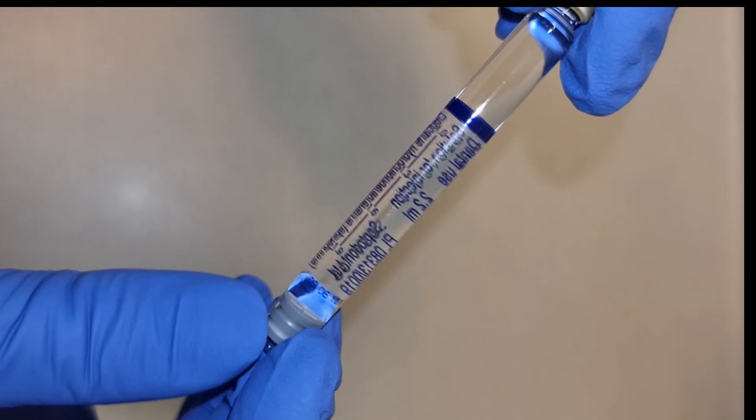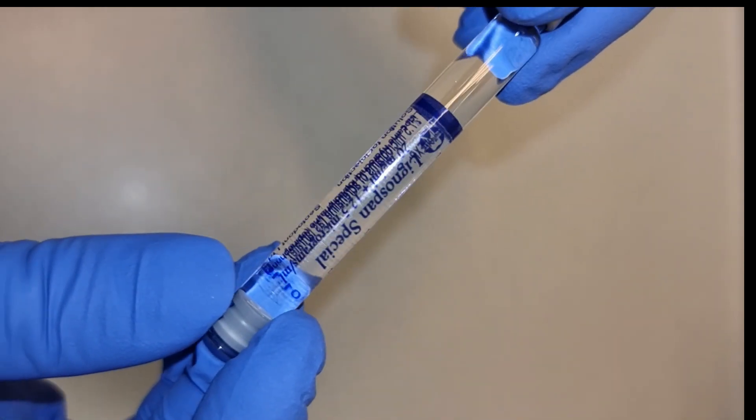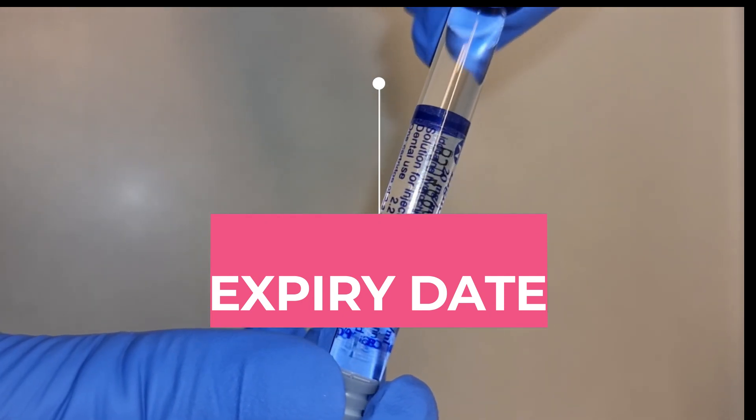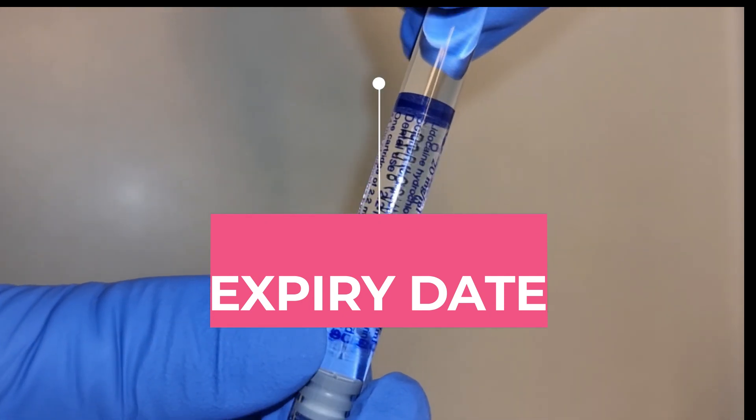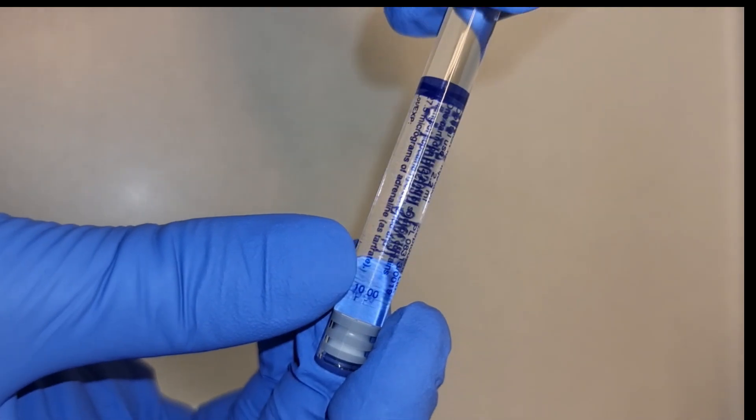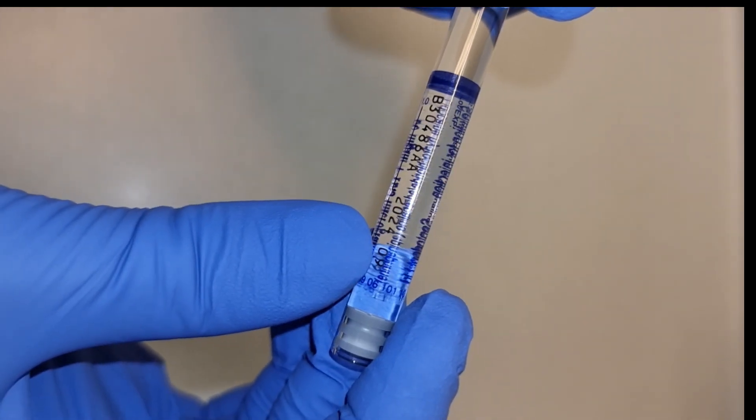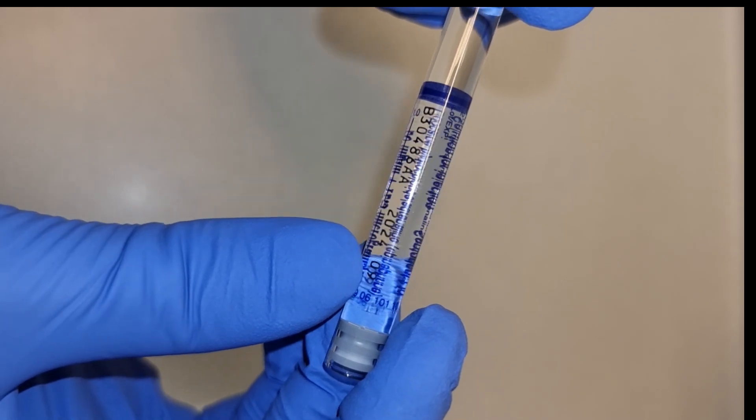Normally it's either 2.2 mils or 1.8 mil. Then you need to make sure that the local anesthetic is in date and hasn't expired. This one you can see is expiring in September 2024.